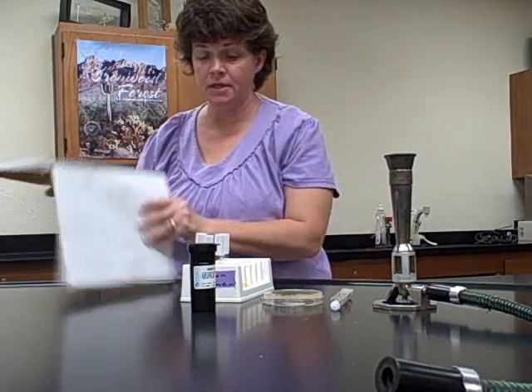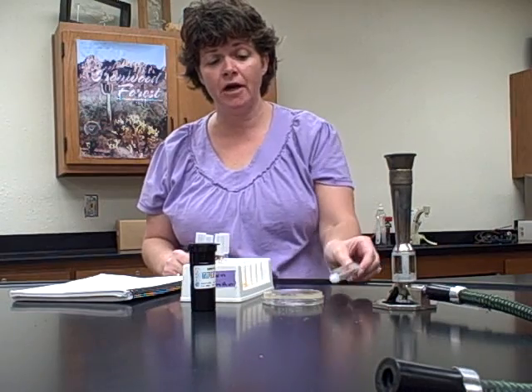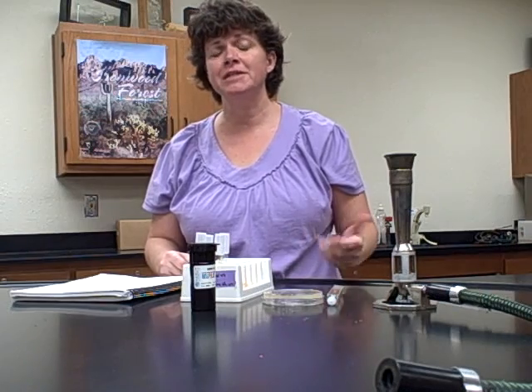Okay, now this is the beginning of the rapid ID method, and this is actually a really fun lab. It uses a tool that is used in clinical laboratories to determine what type of intestinal bacteria a person might have. So if a person comes to the hospital and they present with diarrhea, vomiting, there's many different enterics that could possibly be the problem, and some are gram-positive, some are gram-negative. So to determine what type of antibiotic to give, you would run a test like this to narrow it down. You could actually narrow it down to the species of the bacteria based on the results.